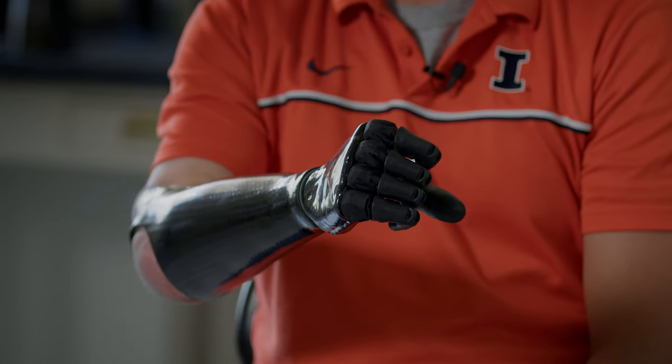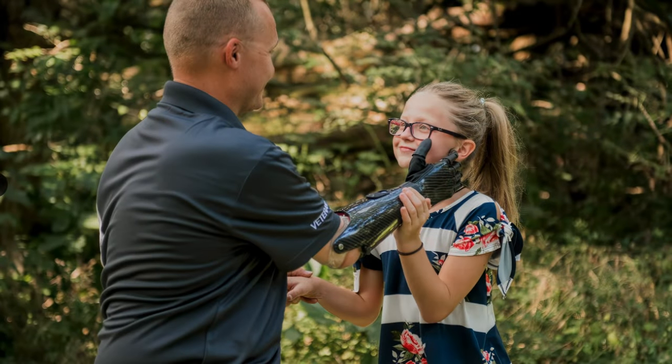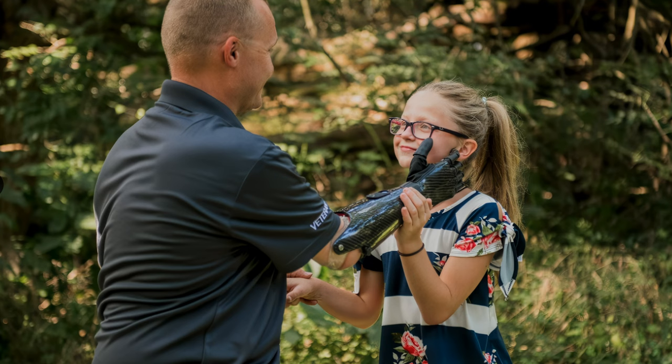Earlier this year is the first time I actually felt touching my daughter's hand with this prosthetic hand because of the sensory feedback.